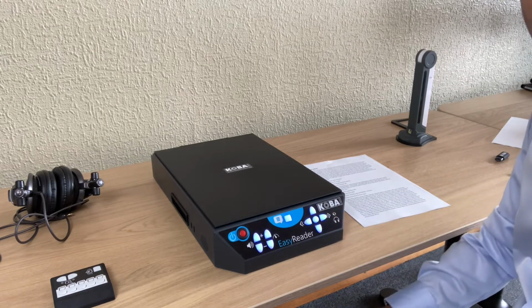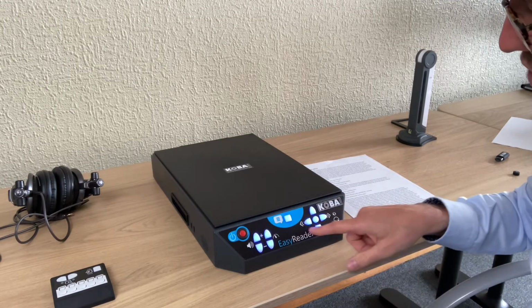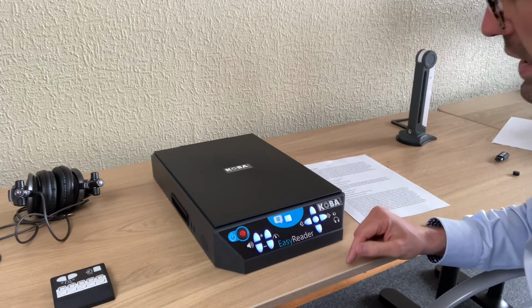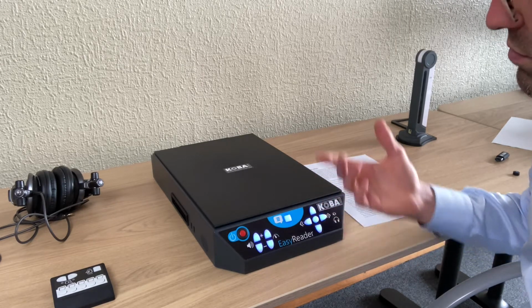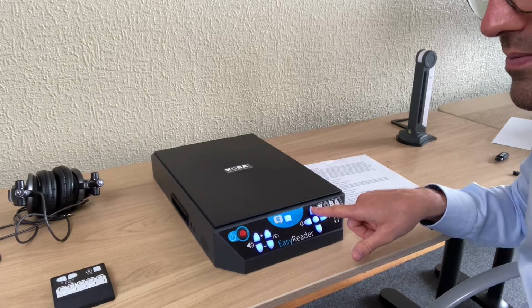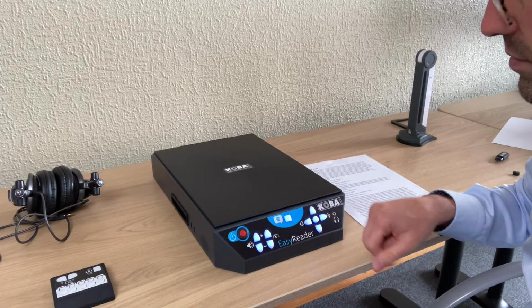So I'll pause the text again. If you would like to navigate, we have a navigation function here under the cross. It's like a daisy player, so it's quite easy. Up and down, that's for choosing the navigation mode. So let's say we would like to spell a text. So let's try to search for spelling. Sentence by sentence, line by line, block by block, page by page, spelling.